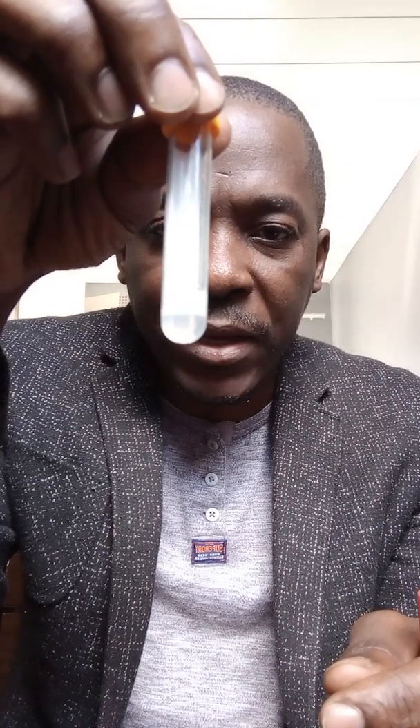The yellow top bottle is very similar to the red one. The main difference is that in the yellow top bottle there is a liquid at the bottom — a serum separator liquid. When the sample is centrifuged in the lab, this serum separator lies in between the clot and the serum, meaning you get a better yield of serum and the serum is not contaminated with red blood cells.